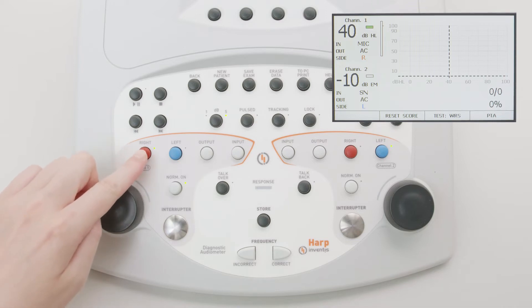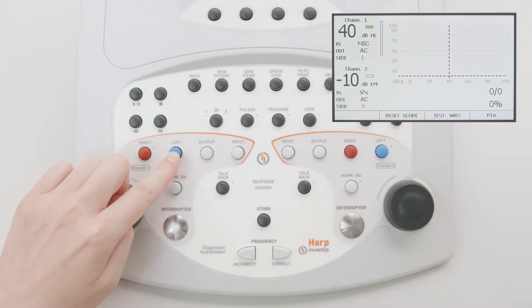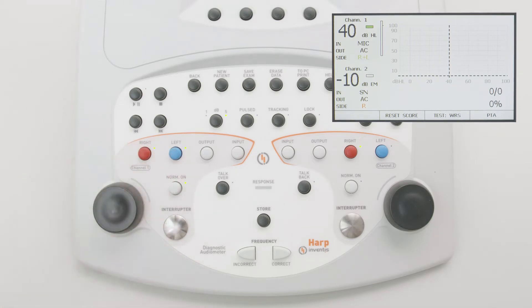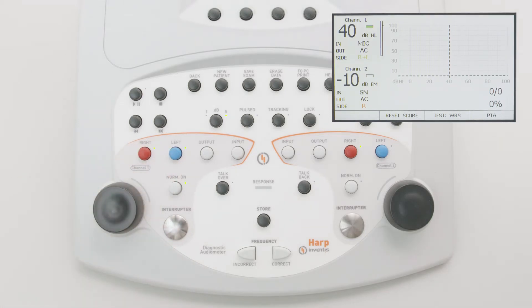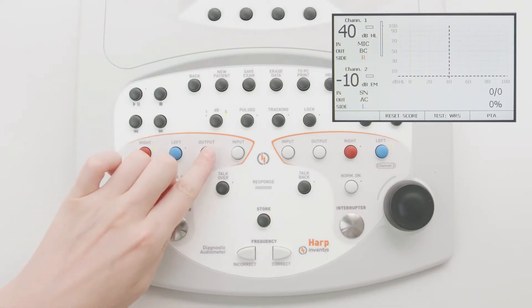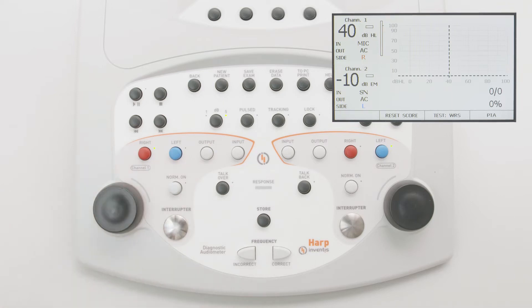The red and blue buttons correspond to the selection of the ear to be tested. Press both at the same time to perform a bilateral test. Transducer selection is made by pressing the output key. The speech signal can be presented to the patient through headphones, bone vibrator, or loudspeakers.